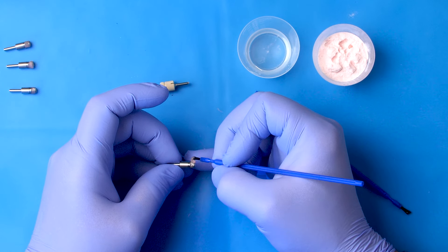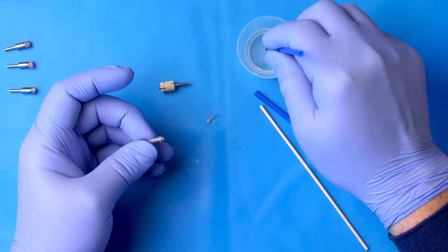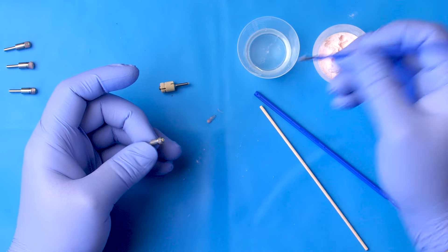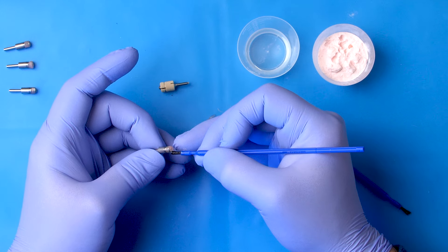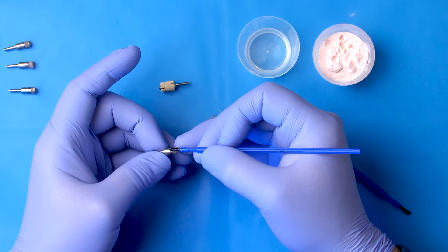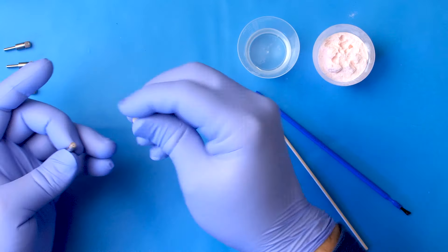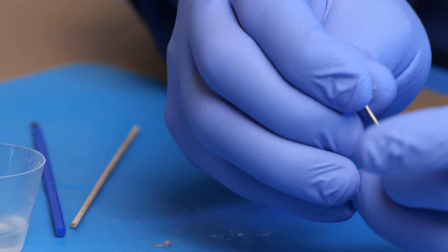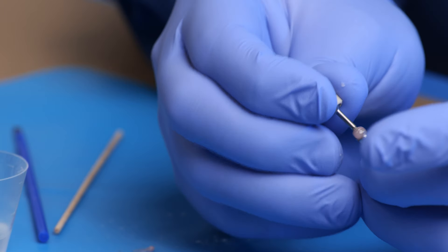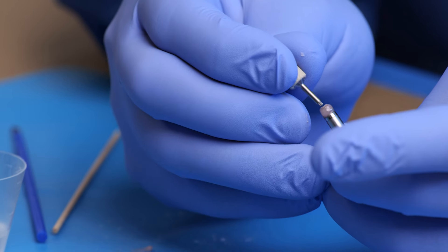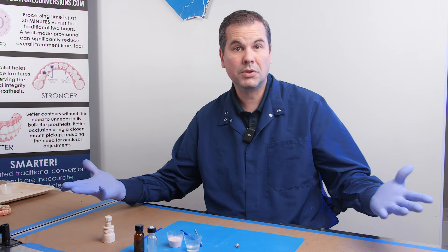and making it as thin as you can with that pre-coating because you don't want to add a whole lot of girth to that part. I do like maintaining access to my separable fastener, so you'll always see me come back and plunge out that separable fastener. So that's pre-coating.